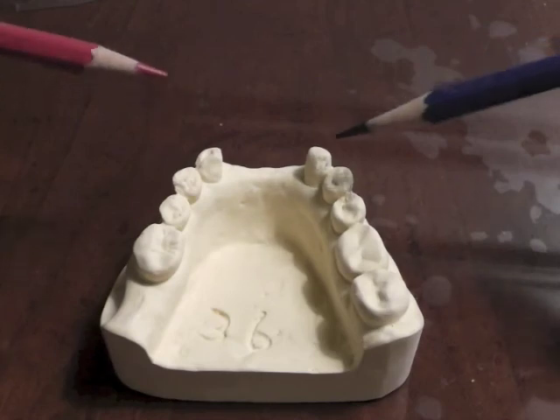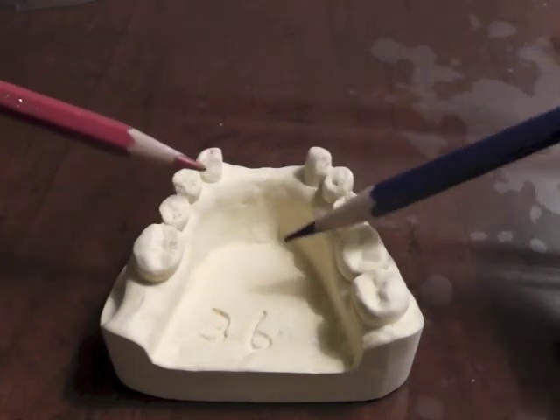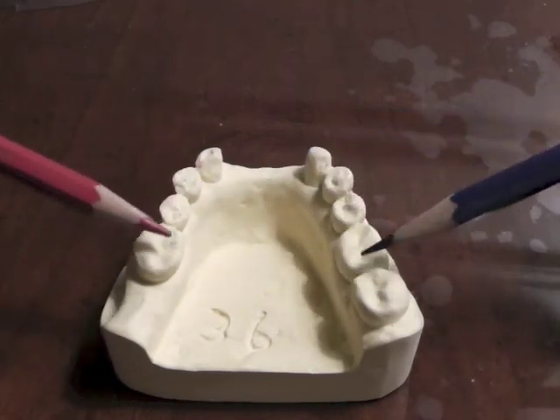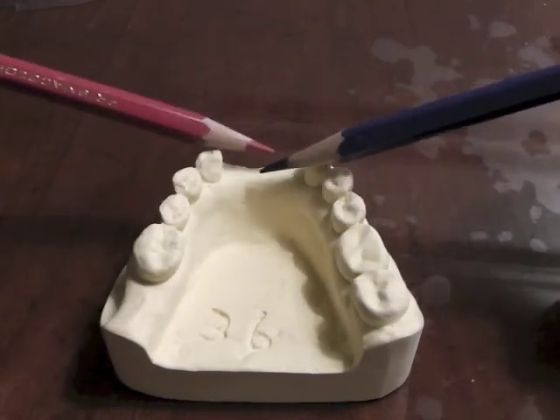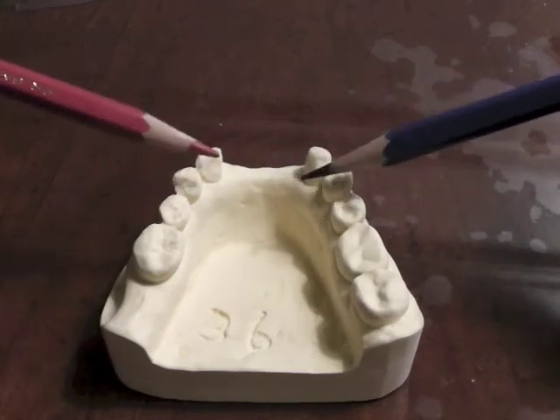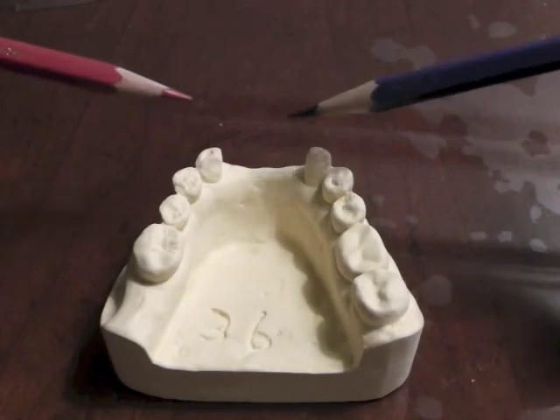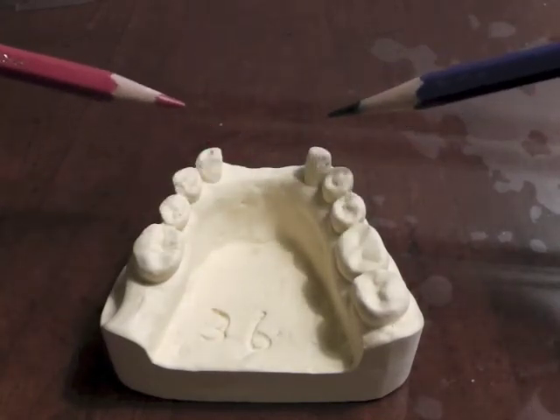The other thing we will have is a major connector that connects all of these areas together. We don't really have a classic lingual bar or plate situation — we'll probably plate those canines, but it's not like we have a lot of teeth to choose between a bar or plate on the anteriors. So that gives us a complete plan.